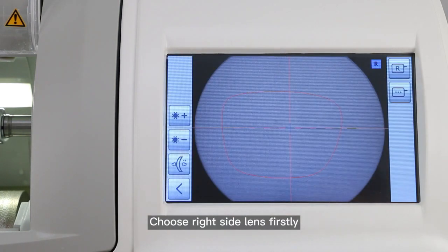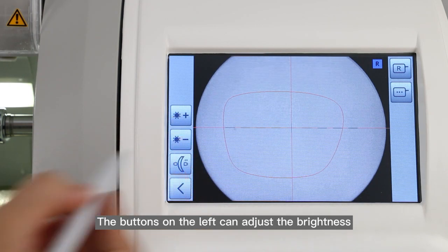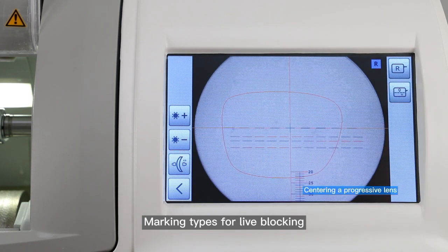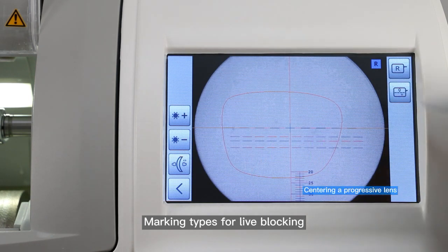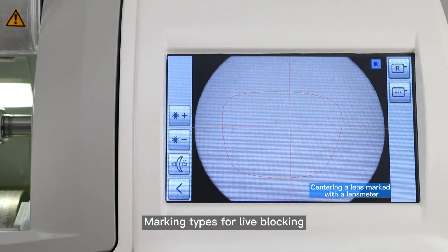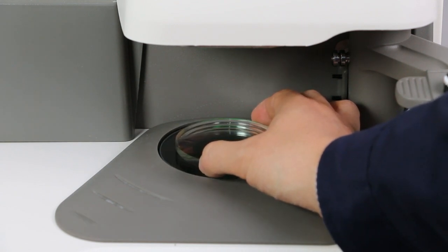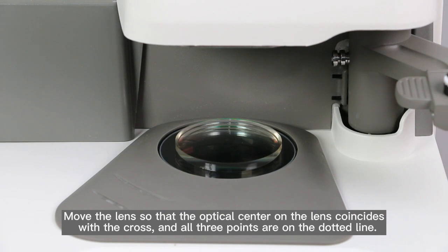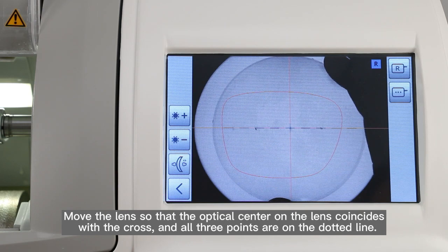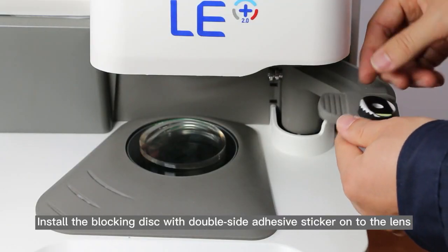Choose the right side lens first. The buttons on the left can adjust the brightness. Place the lens marked with a lens meter on the scanning area. Move the lens so that the optical center on the lens coincides with the cross, and all three points are on the dotted line. Install the blocking disk with double-side adhesive sticker onto the lens.